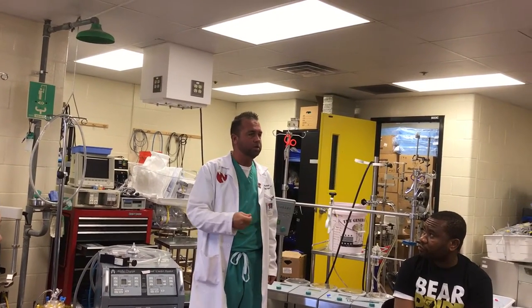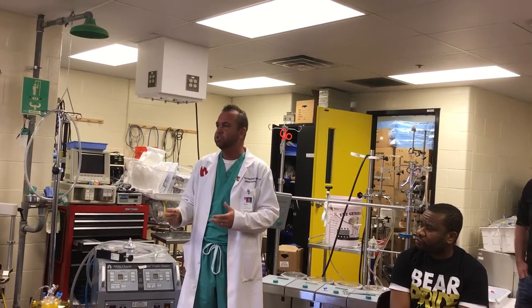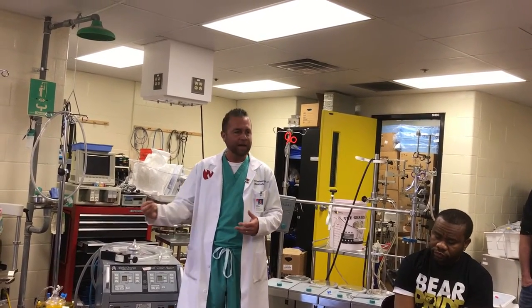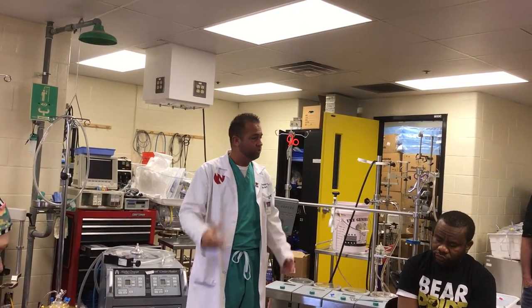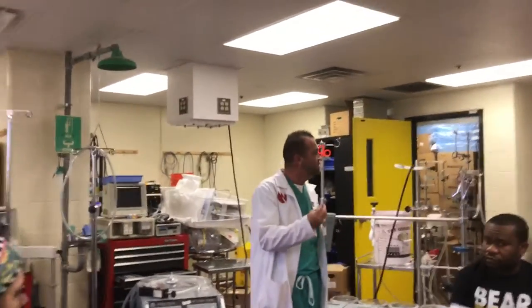We never want to see anyone picking up the chart when they're giving antegrade and turning the antegrade back — you can chart those things afterwards. Electronic charting removes some of that burden and provides a continuous record. Documentation is a really important part of the maintenance procedure.